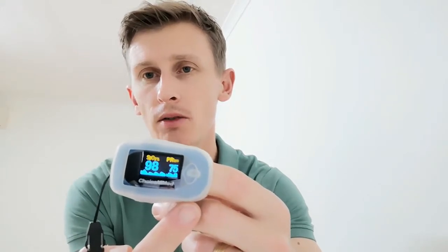So generally you'll start at about 97 or 98%. Mine actually says 98% at the moment — sorry for the reflection. They'll also show your heart rate as well; this one says 98% and 74 for my heart rate. So you'll start off like that, then start to exercise, and you'll find that the oxygen saturation starts to come down a little bit more with each minute of exercise that you're doing.